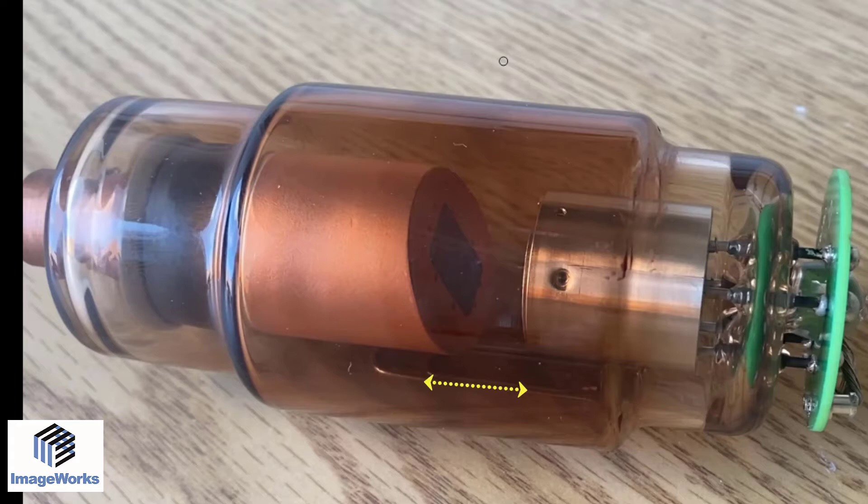There's a voltage potential across the space that causes electrons to be emitted from the cathode and slam into the anode target, which creates x-ray. In its simplest terms, the size of the focal spot of the dental x-ray is the size of the beam that comes off of that anode target.